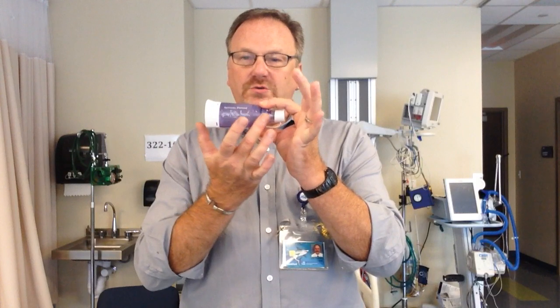Spacers are utilized to decrease the coordination needed to use a metered dose inhaler. They also slow the particles down. If you spray it directly in your mouth, like you see many people doing, what happens is called inertial impaction — where the particles hit the back of the throat, the patient swallows them, they go to the stomach, and they don't do any good for the lungs.